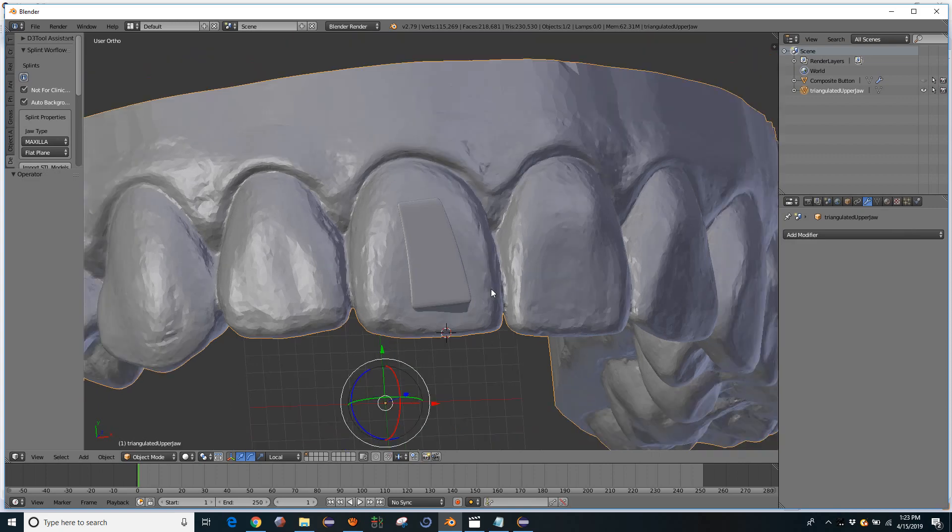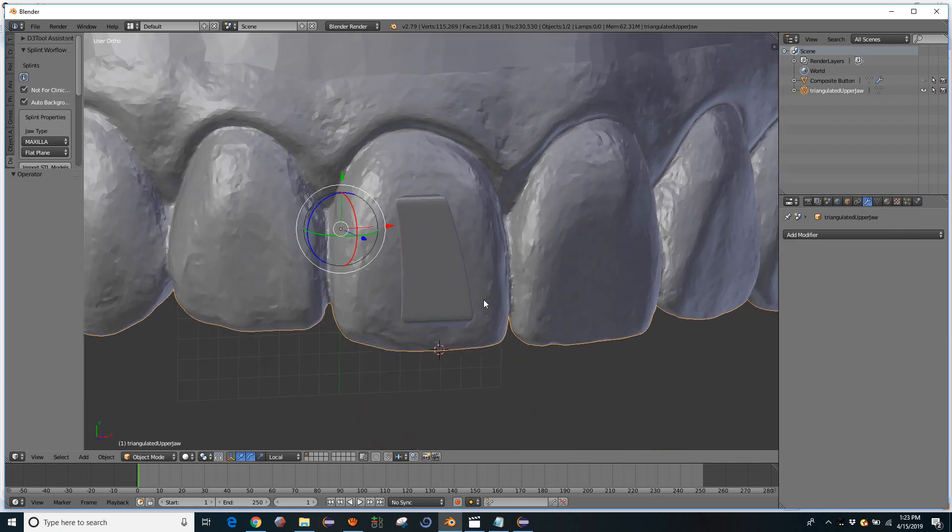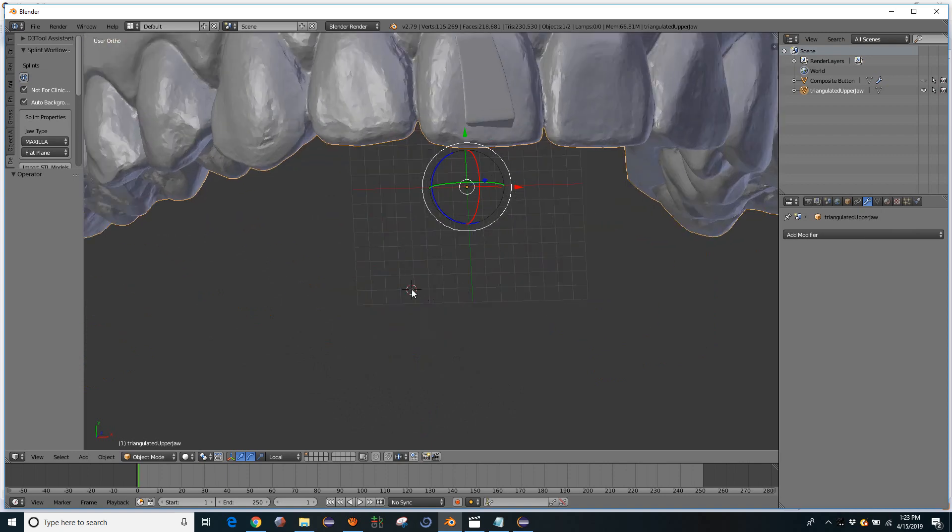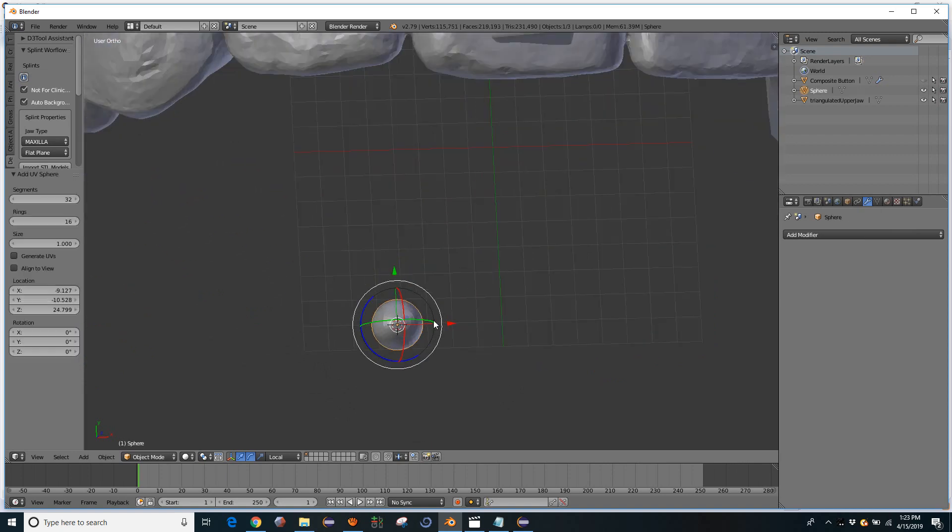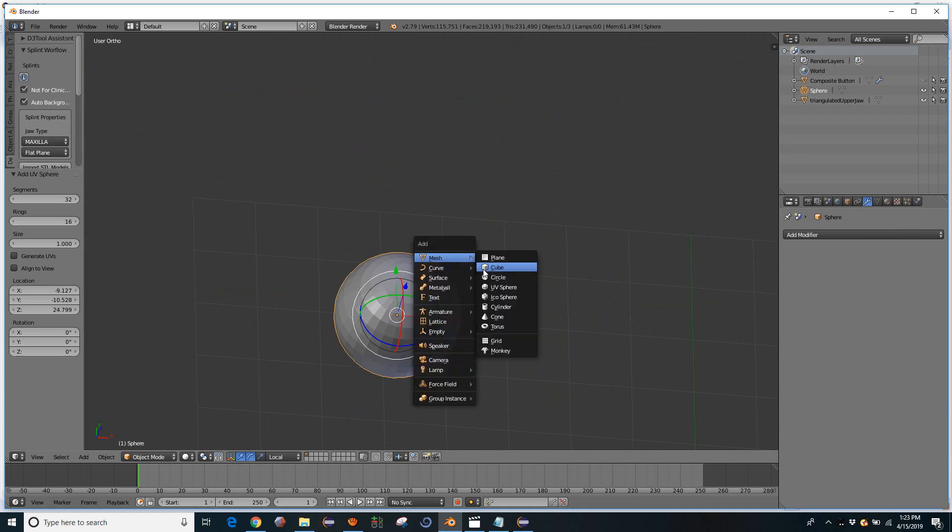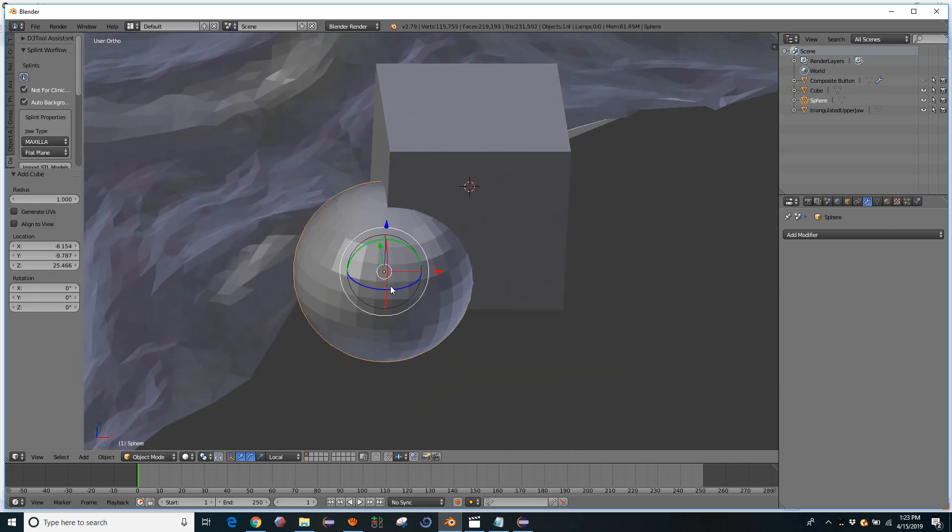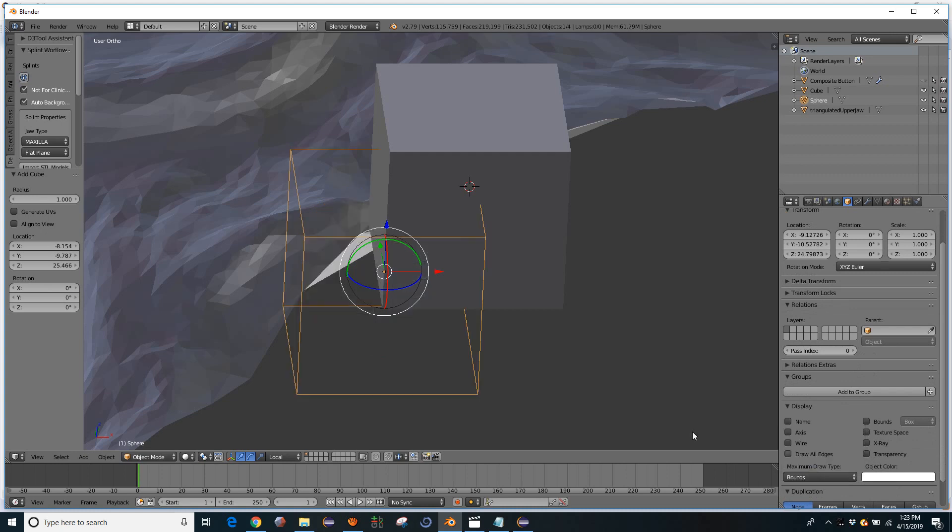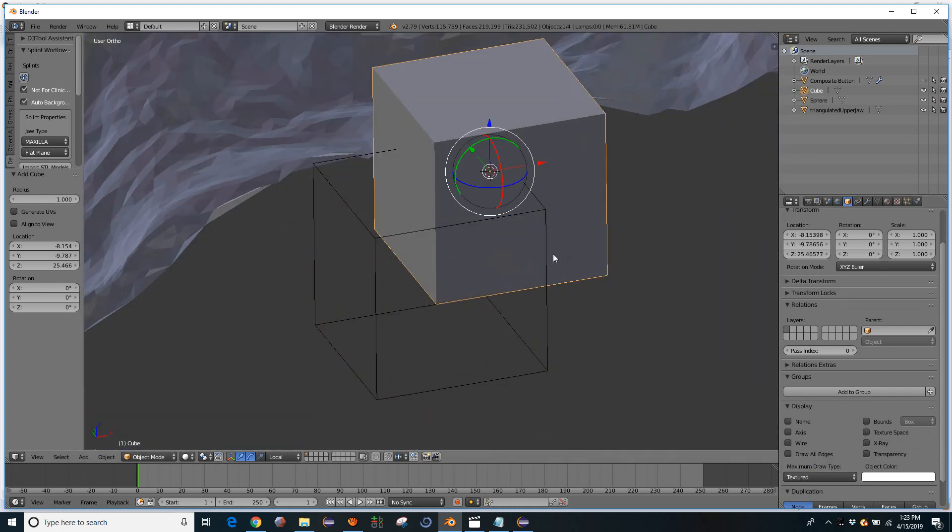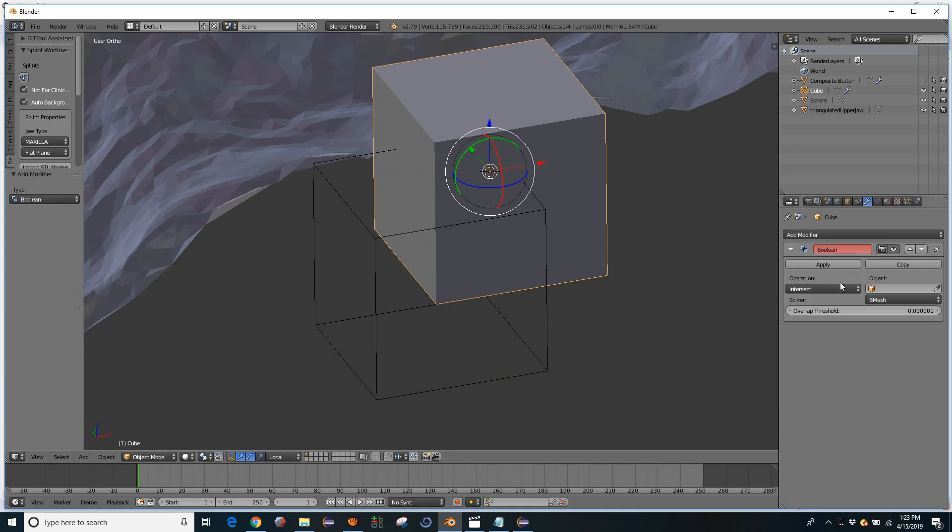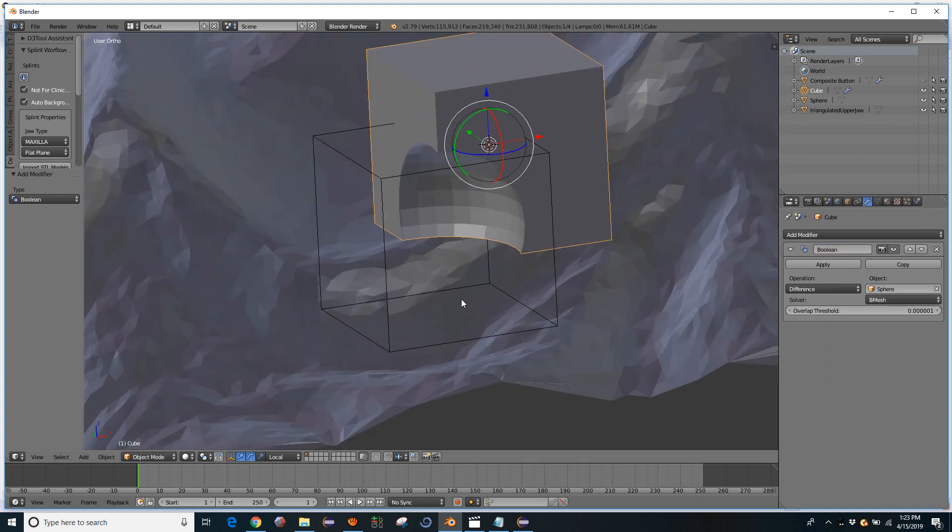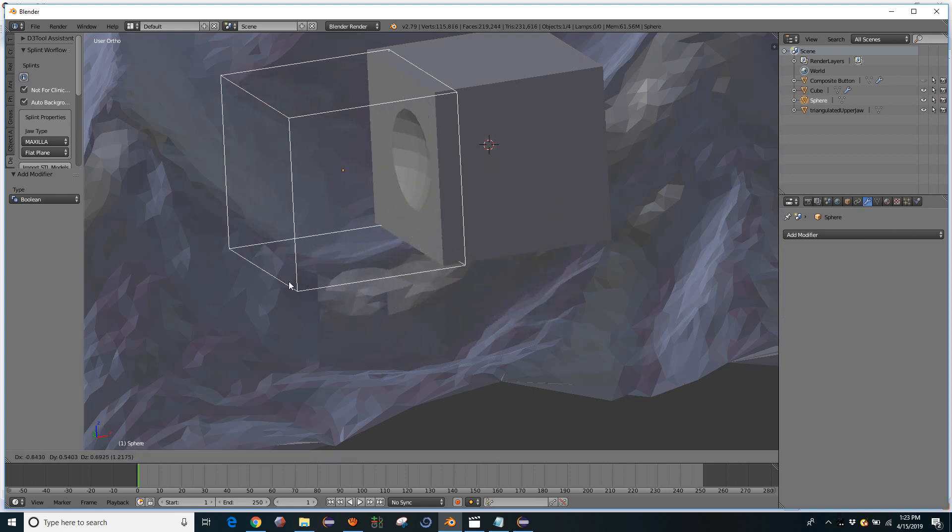So Blender's Boolean system works a little differently because it's meant to be more dynamic, more animation based. So we're going to draw the outside bounding box of this sphere, and then add a Boolean modifier, subtracting that sphere from the cube. Okay, so the sphere is here, just invisible.